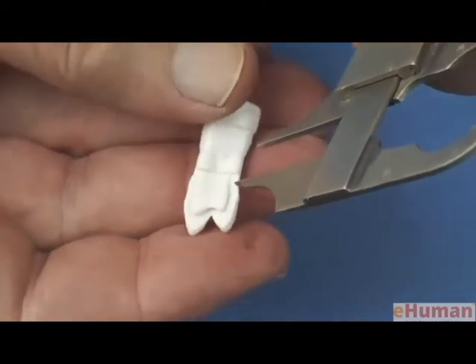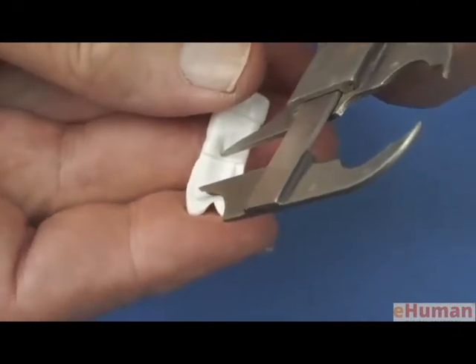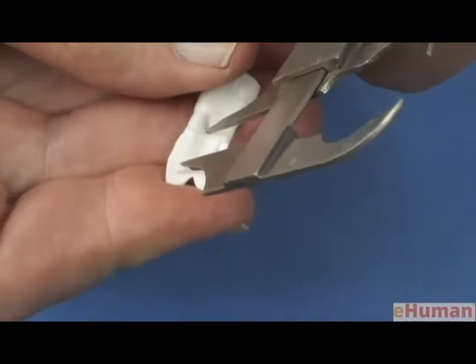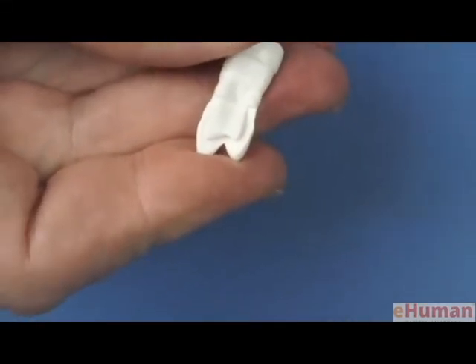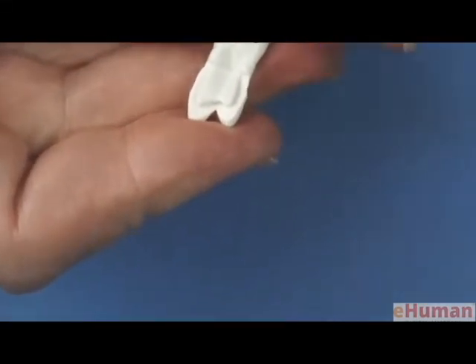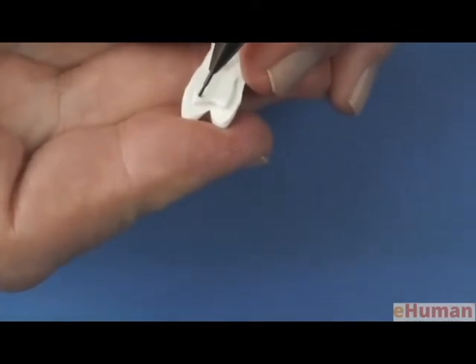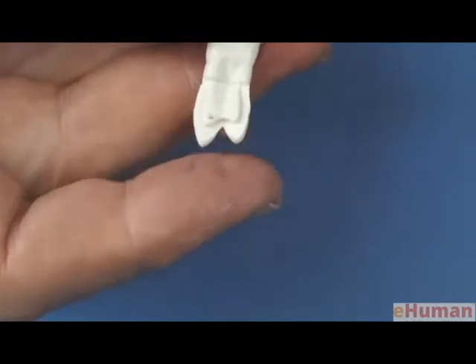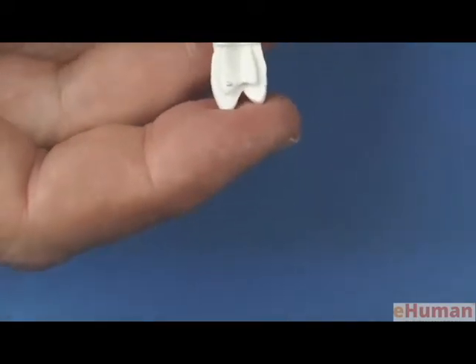So we'll transfer that root measurement, and there we know this particular point, and I'll scribe a little mark there that we can accentuate with our pencil, and that shows where the contact's located, and that will be the first area where we'll create a prominence of wax.